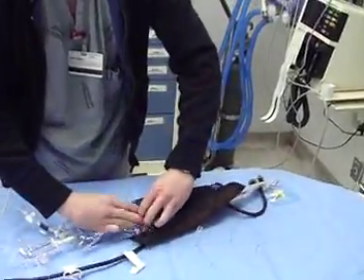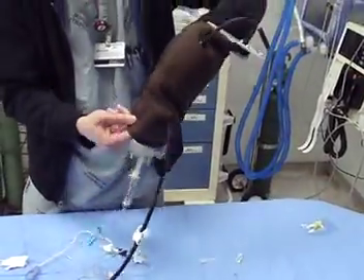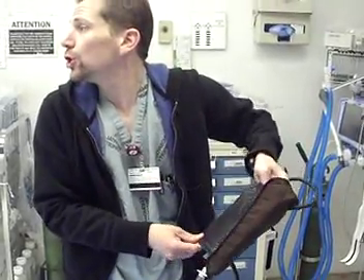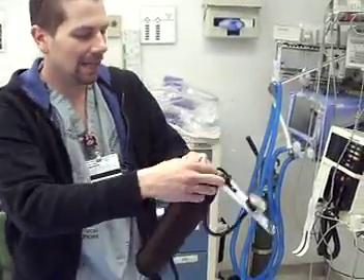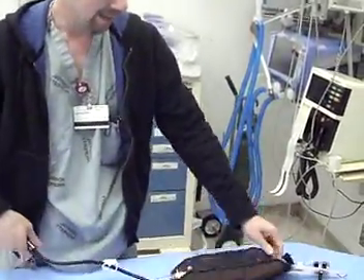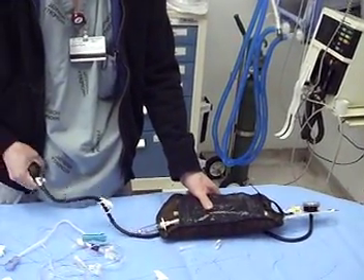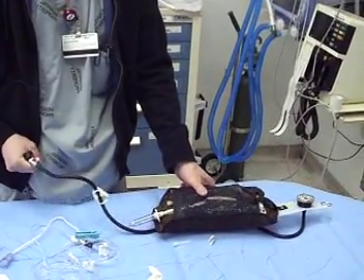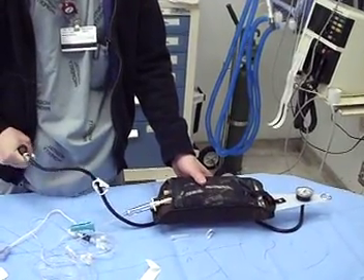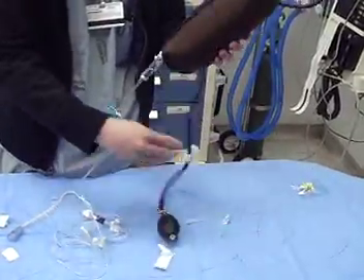Take your bag and pop it into your pressure bag. Now you can put this brown doohickey on, but it's not really necessary — if you inflate the bag it'll hold in your IV fluid bag. I'm just going to inflate this to 300 now. At that point, close the stopcock. Now it's locked in at 300.